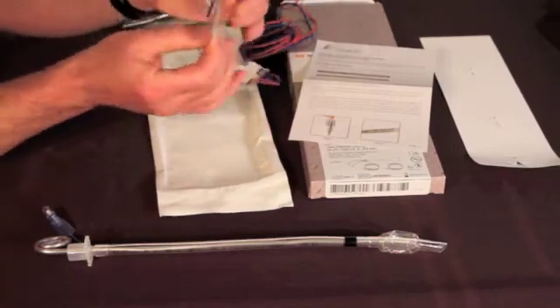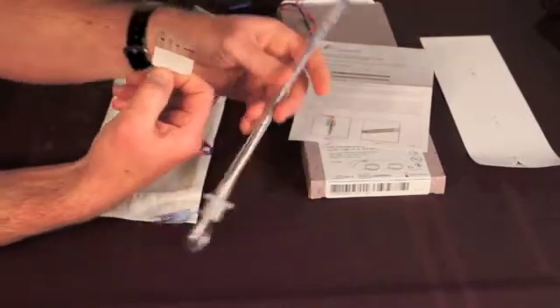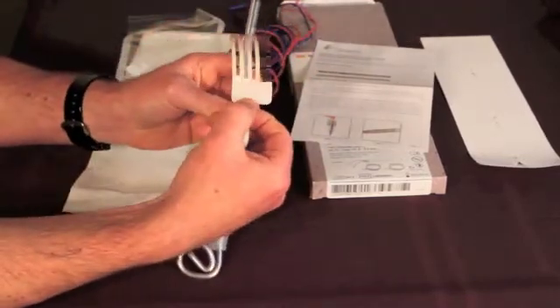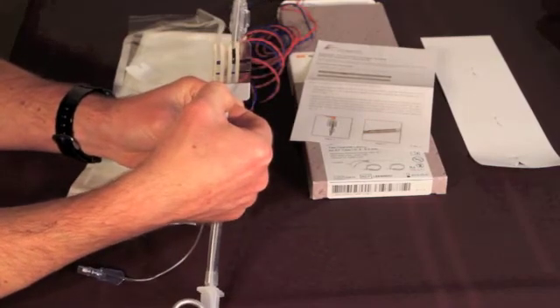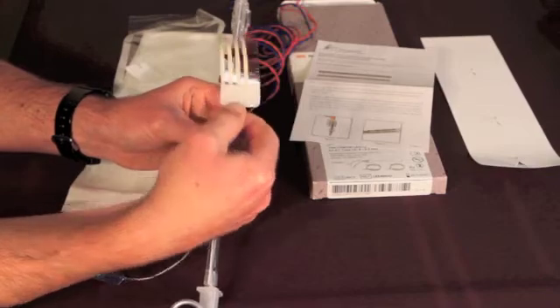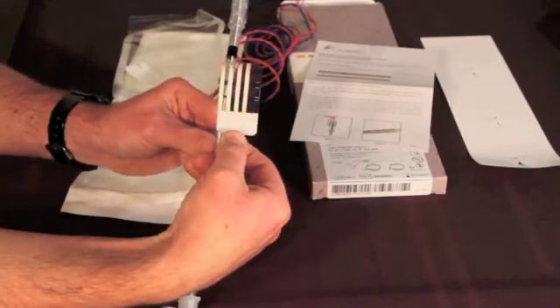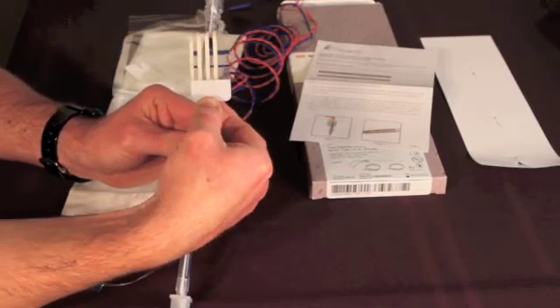With that done, I'm going to hold the electrode and look through the clear backing so that I can see the tube behind it, and I'm going to position it so the pairs of silver stripes are evenly spaced, two on each side of the bottom of the tube.